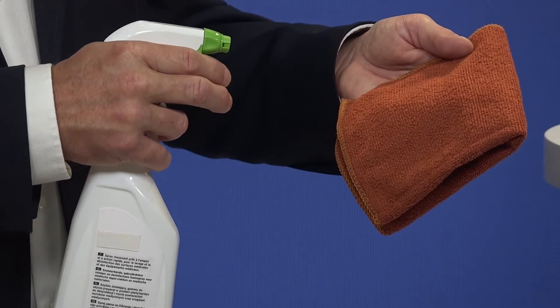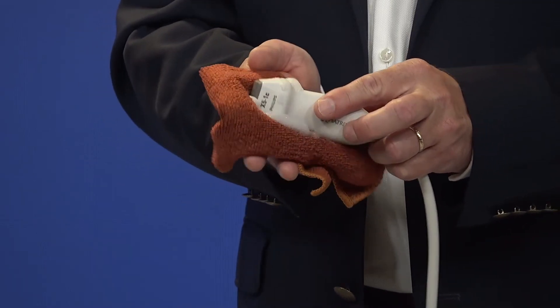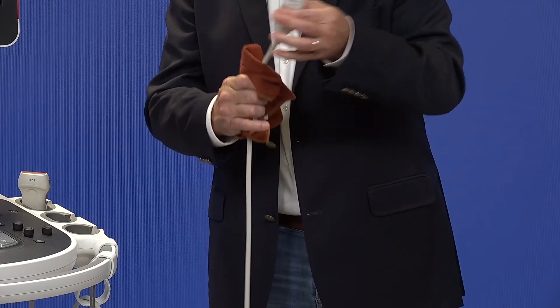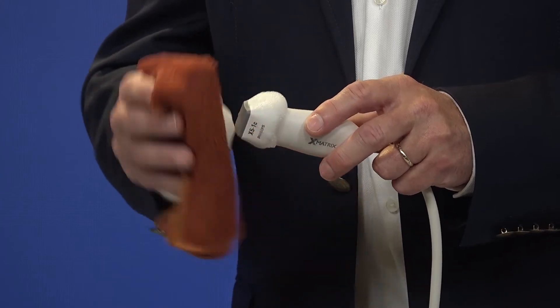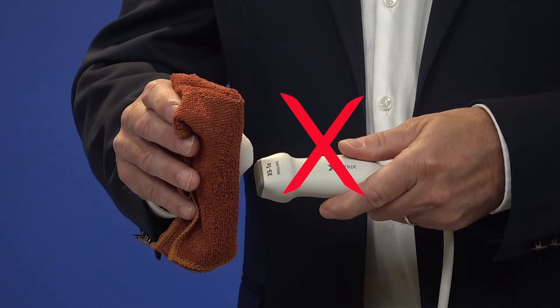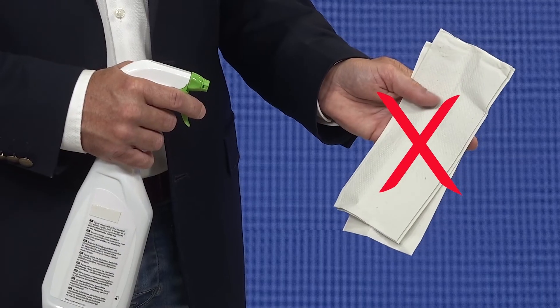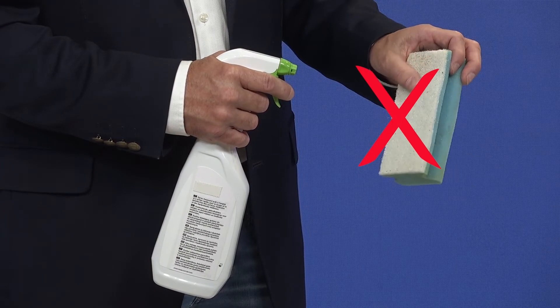When you are done wiping off the gel, low-level disinfection is the next step. To disinfect a transducer, you can use a spray or wipe procedure. When using a spray, spray some fluid on a soft cloth, clean the transducer and cable, and allow to air dry. Use the same technique as before and wipe the cloth parallel to the contact surface. Do not twist when disinfecting the transducer, and do not use paper or other material with a rough surface like an abrasive sponge in combination with the spray to disinfect the transducer and the cable.